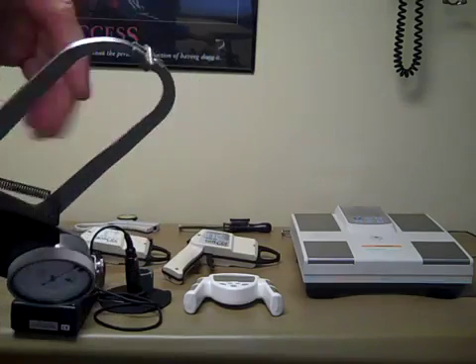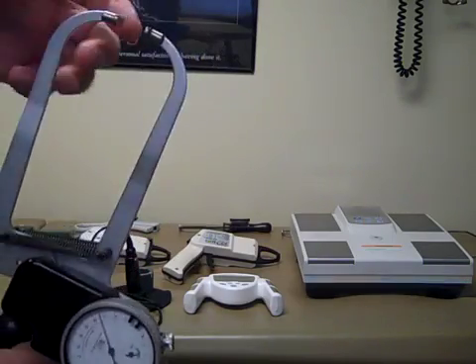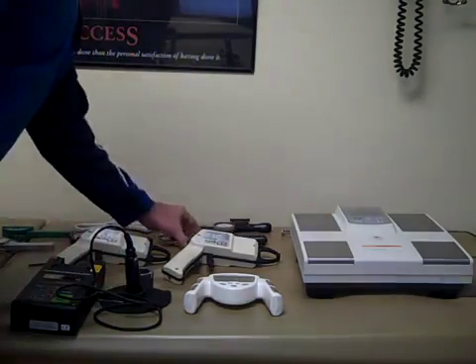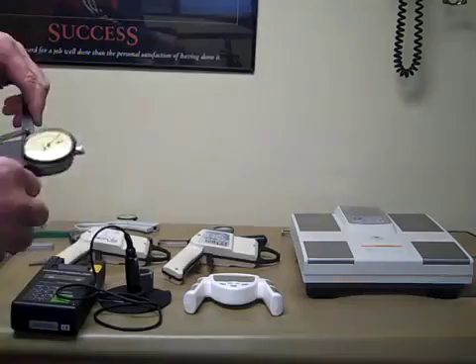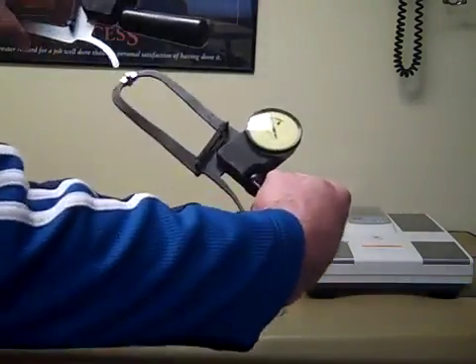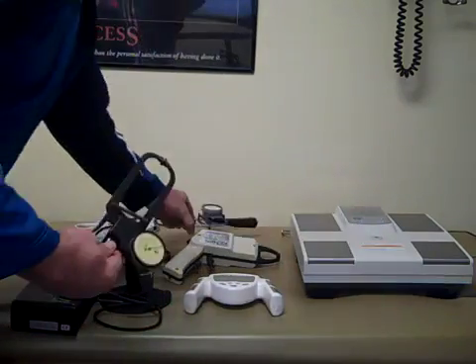The blades are approximately one centimeter, and this is the depth you would go in and take your measurement. They do make Harpenden calipers in smaller sizes for smaller hands. You can see this is much smaller on the handles, so you can have that option also.